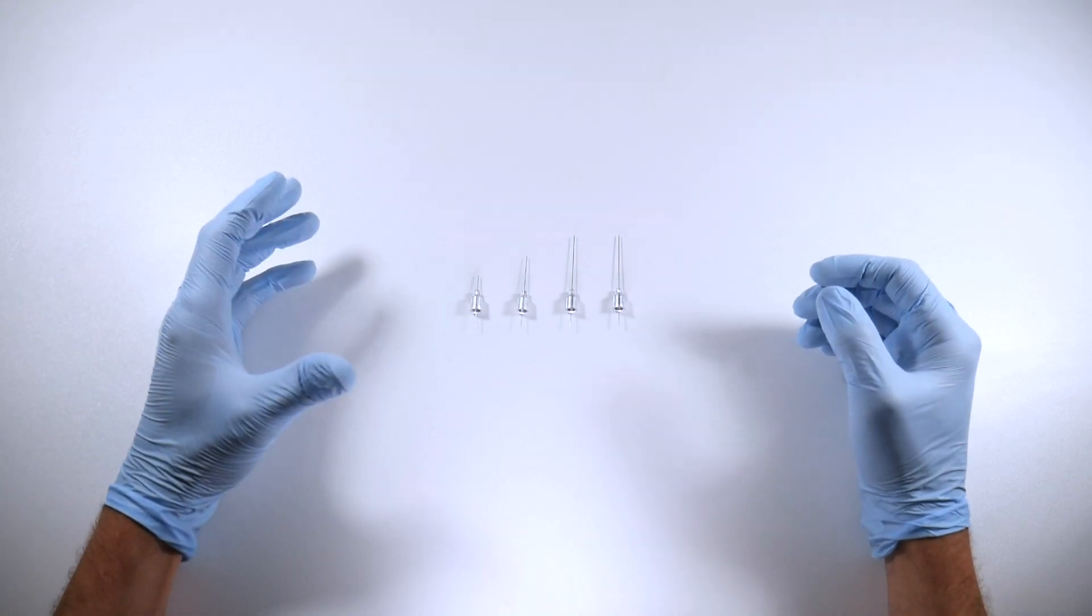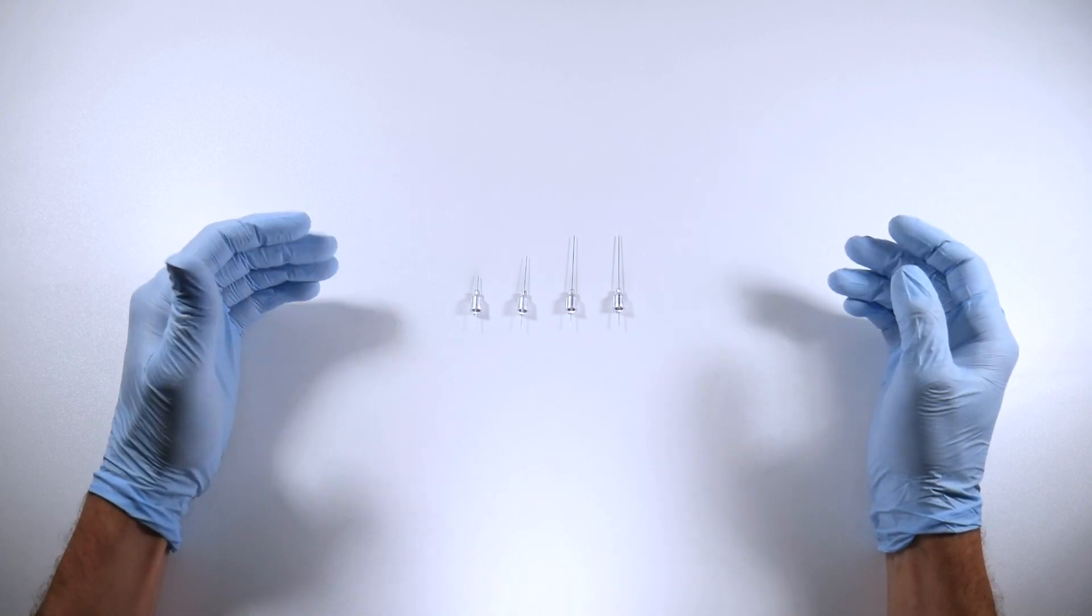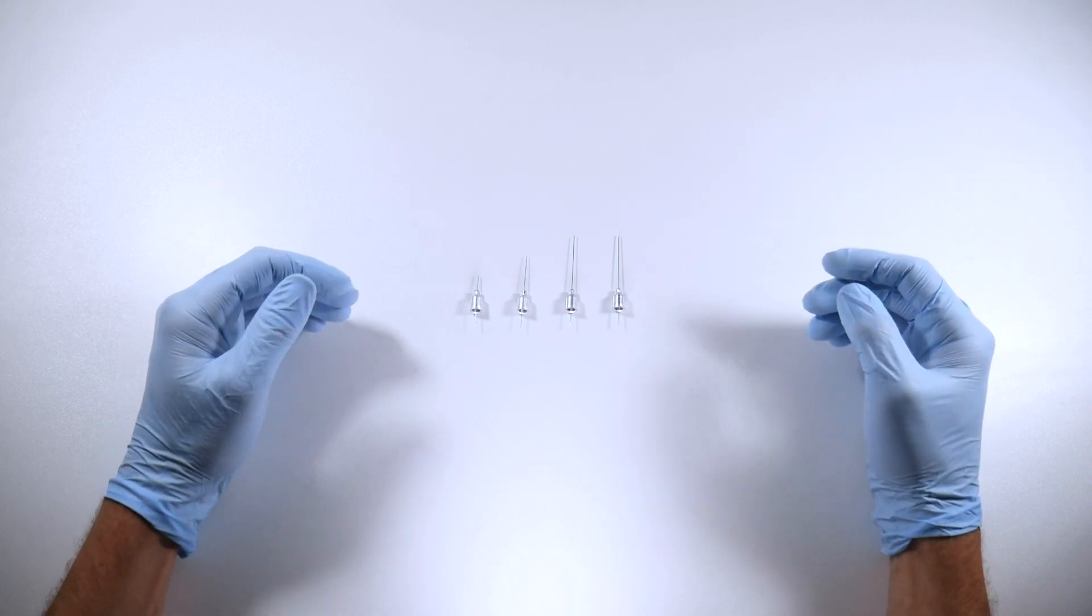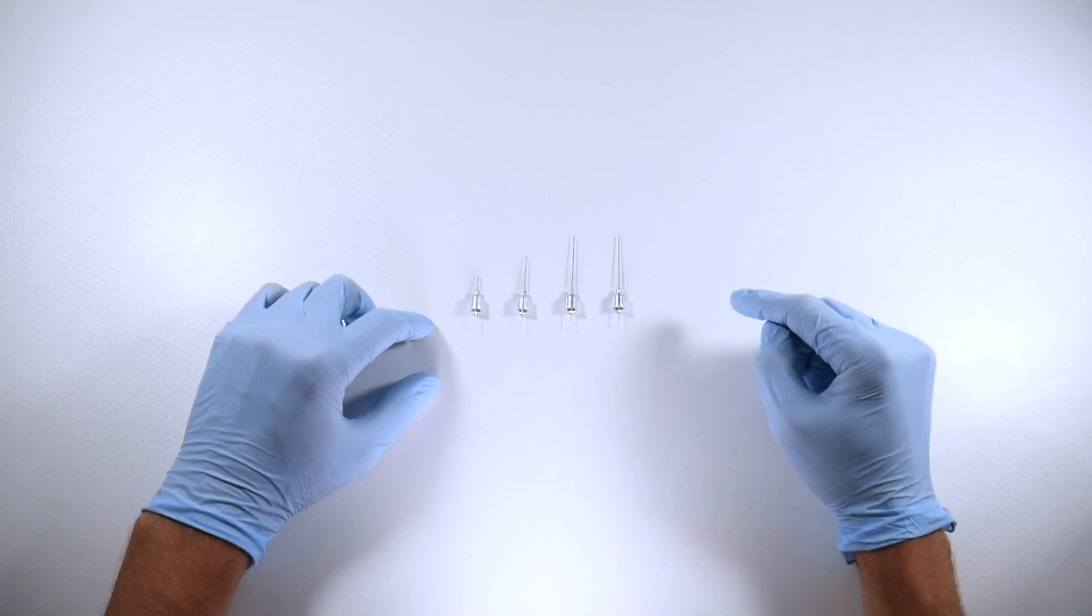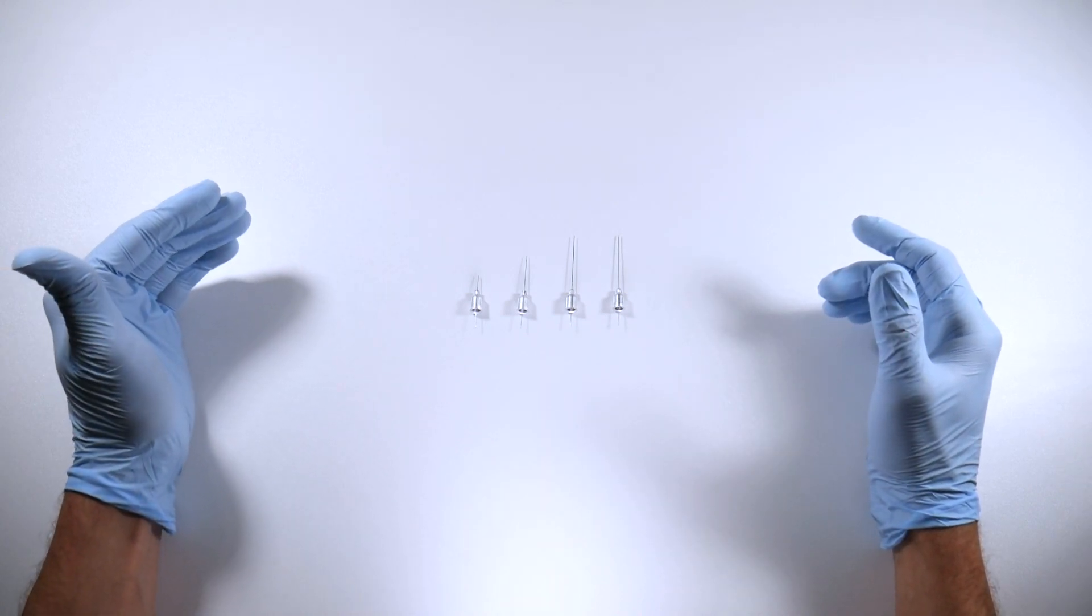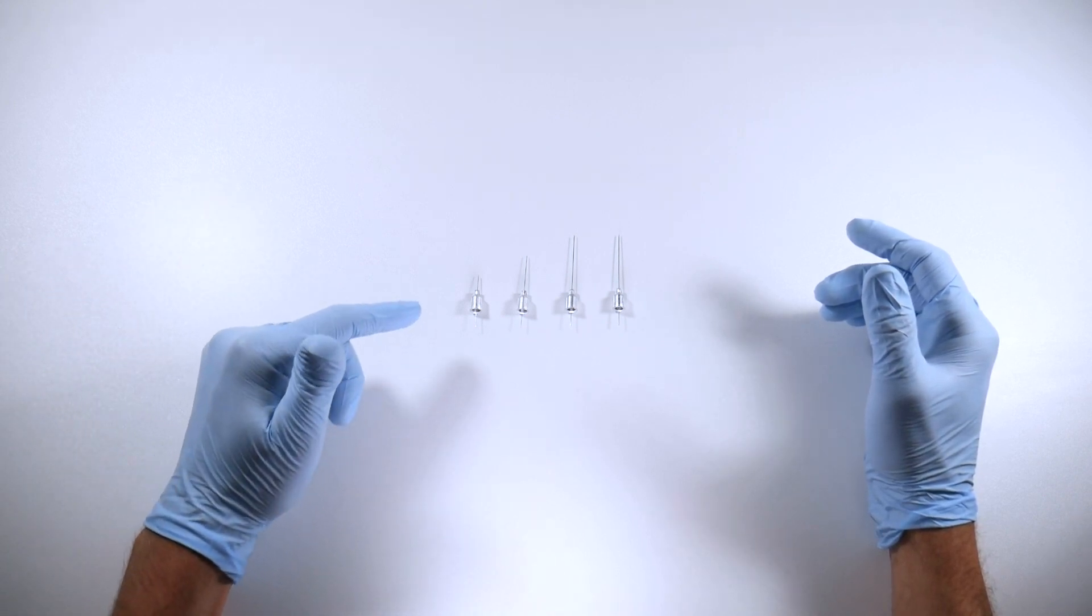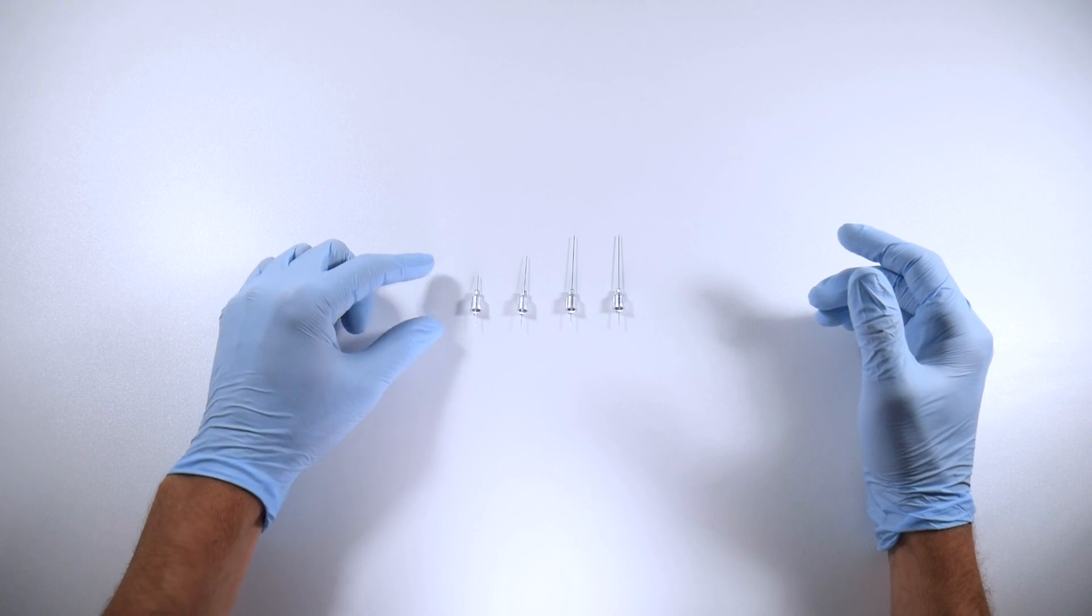They do it because patients will be more comfortable and it's easier just to stock one needle. Yeah, that's an okay approach, but you probably want to have a variety of needles for a variety of different reasons. There are other videos in the course that talk more in depth about some of these features, but today, just specifically length.